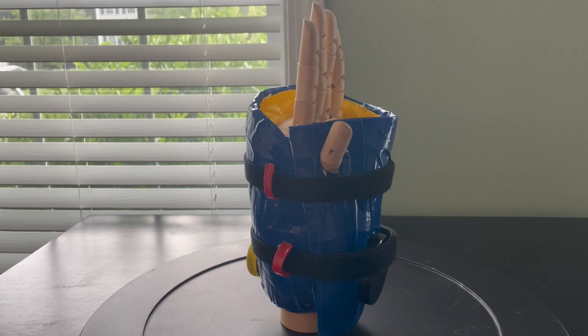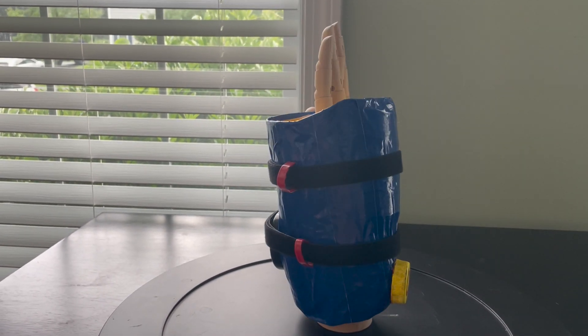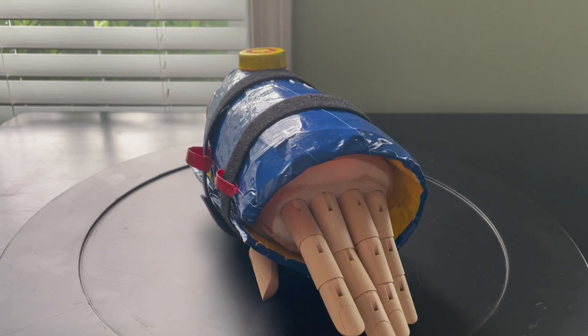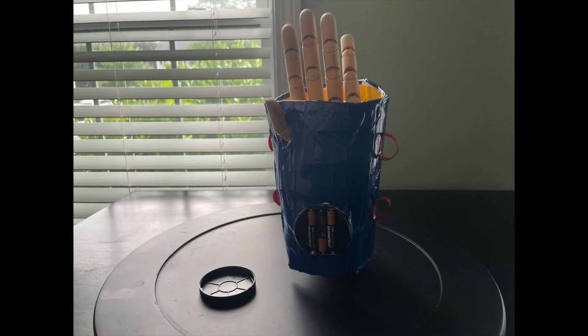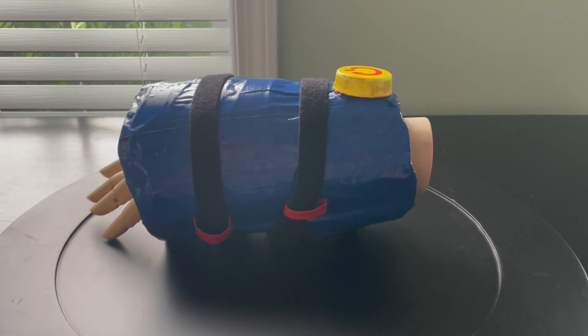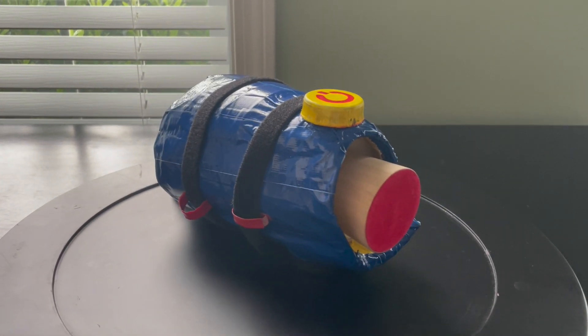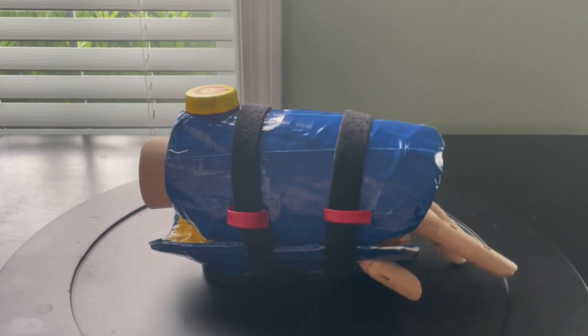This layer is held to the wrist with velcro straps, which can be easily replaced if damaged. The infrared light sits on top of the wrist, and the battery is on the inside of the wrist, connected through wiring so the battery pack does not sit above the injury. Although our prototype shows red visible light and AAA batteries, the true device would consist of infrared light, which is not visible to the human eye, and a rechargeable lithium-ion battery.